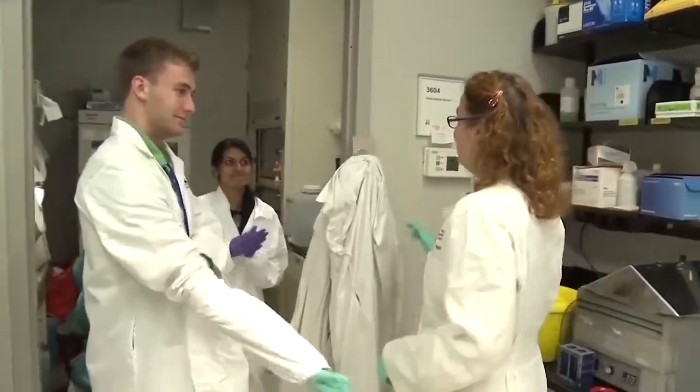You know, in the clinical micro world, especially where we are at NIH, we have a lot of close interactions with not just the micro people, we have the infectious diseases, the staff that come down here to tell us about the patients. We have hospital epidemiology, who's worried about potential outbreaks. And so whenever there's a bad bug, they're down here asking more questions. Is it related to this bug that we saw last week? And so that's what gets me pumped up to see that you're really impacting the way that not just a section works or how a person works, but it's how a hospital works. And it's really impacting patient care, which is the reason why we do this stuff.